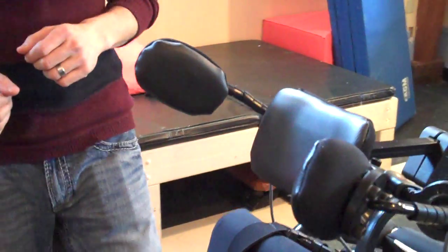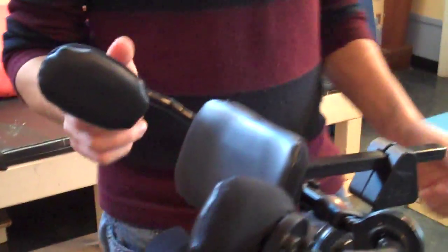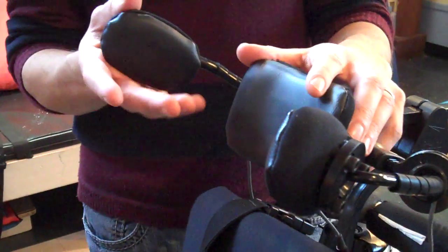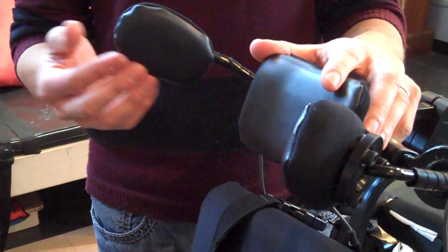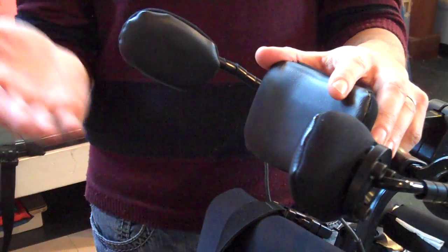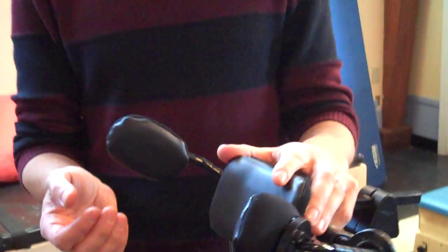And are these proximity switches? These are proximity switches. Proximity switches don't require any actual pressure. They work off the electrical conductivity of your skin. All you have to do is come within about a quarter of an inch of the surface of that switch, and it will activate.